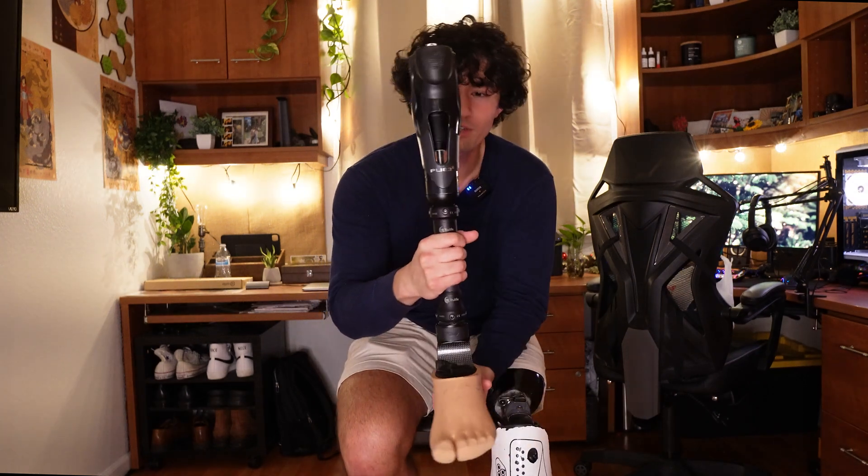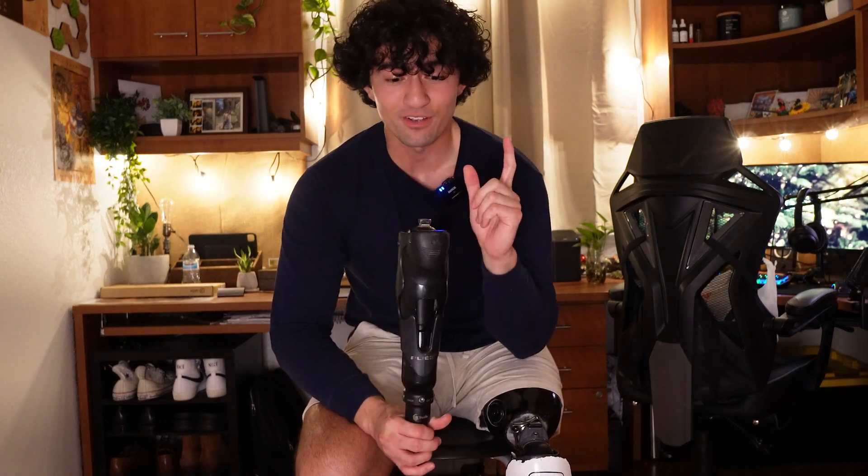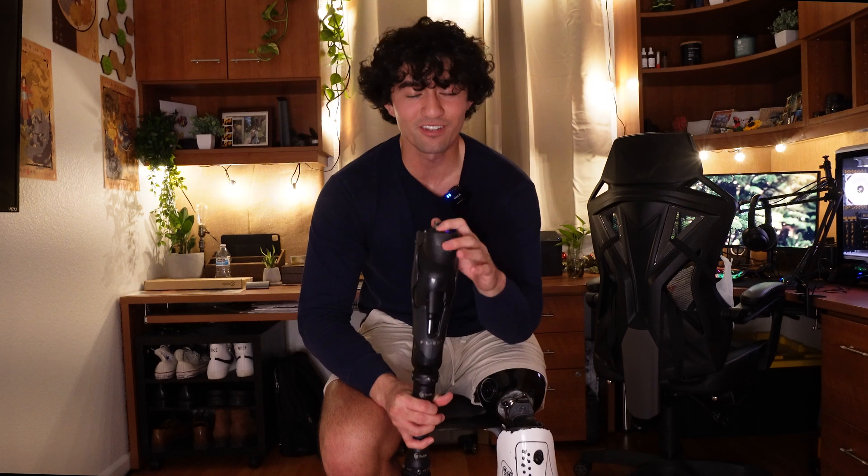The Plie has about a one to two day battery life, and its battery is actually a camera battery. There were plenty of times I forgot my leg charger on a trip. But the special thing is you can go to any camera store, buy a camera charger, and charge your leg battery. It always made for an awkward story — they're asking what camera I want and I'm asking for a leg battery.